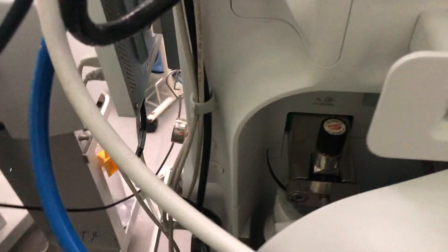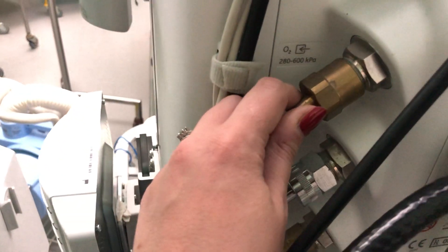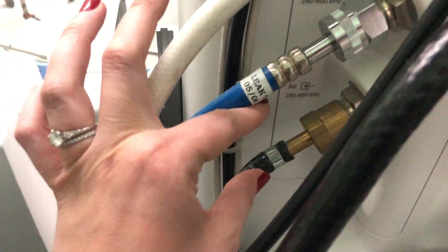At the back of the machine there's a backup in case your main oxygen fails — the oxygen cylinder located inside, marked oxygen. It must be present on the anesthetic machine, and we must check there's enough oxygen in it. Some machines also have nitrous oxide cylinders as a bonus. The pipeline connection points are also clearly marked: oxygen, nitrous oxide, and air.